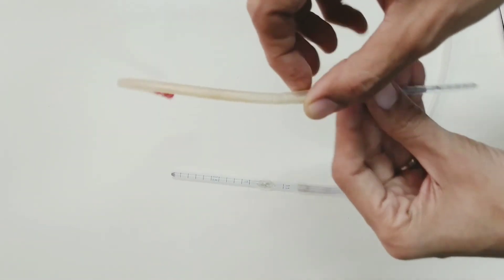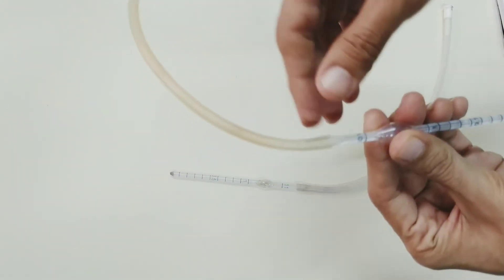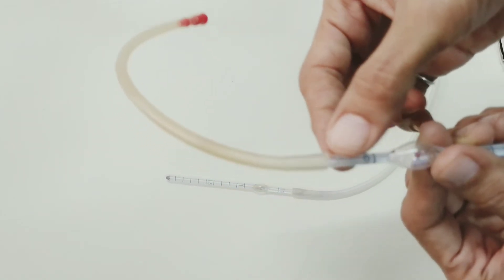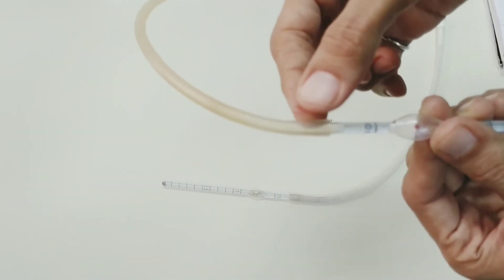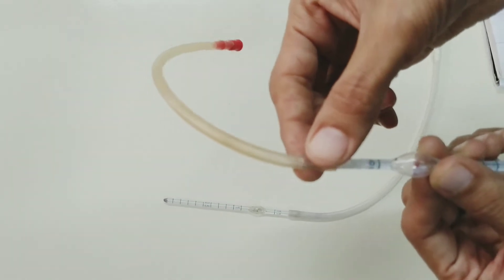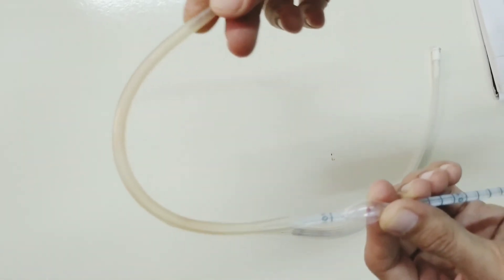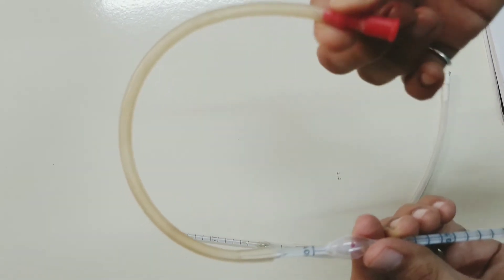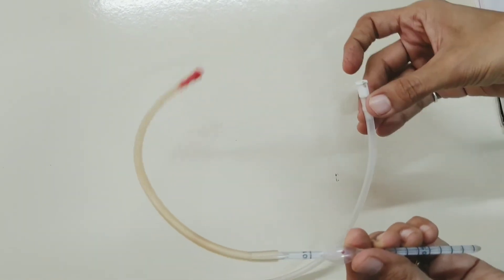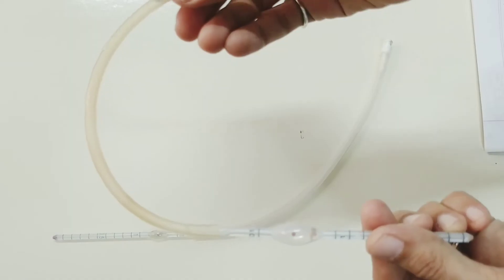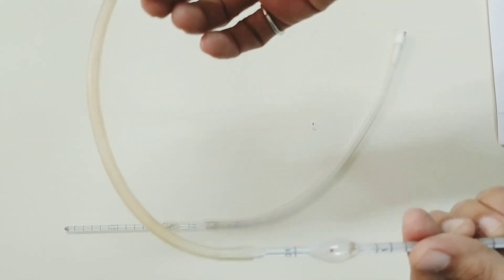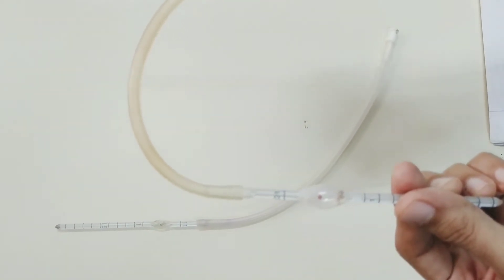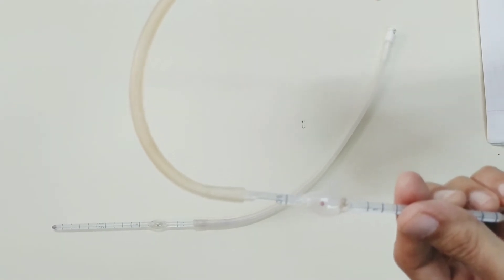Next part of the pipette is rubber tube and mouthpiece. The bulb narrows again into a short stem to which there is a long, narrow, soft rubber tube bearing a mouthpiece. This mouthpiece is red in the RBC pipette and white in the WBC pipette. Length of the rubber tube is about 25 to 30 centimeters and it facilitates filling of the pipette by gentle suction.